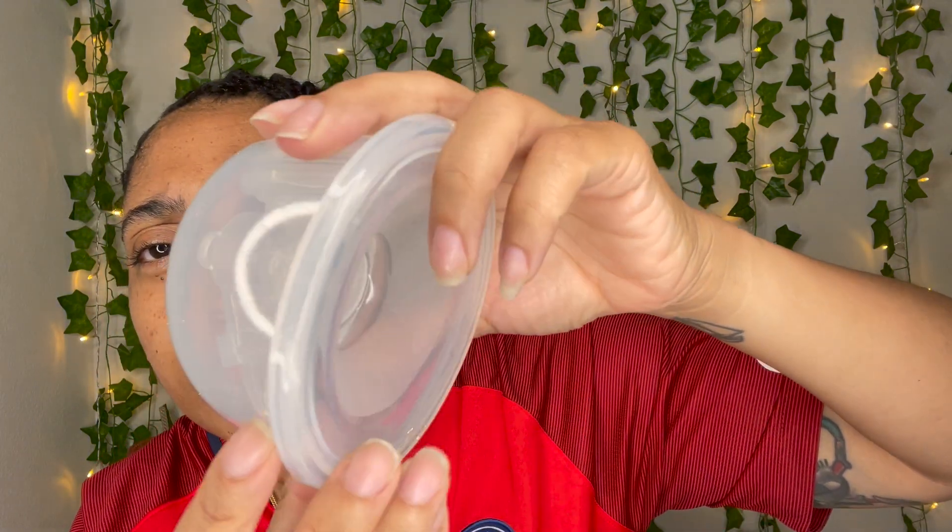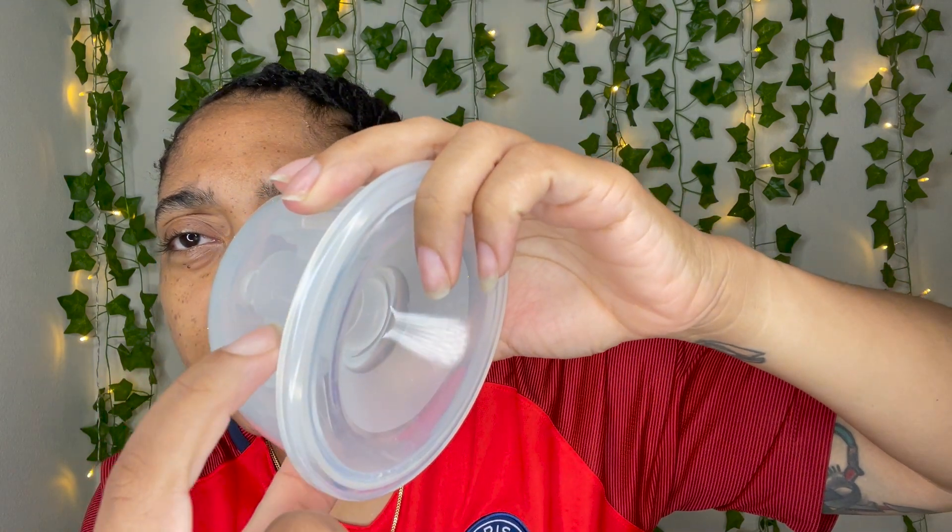I like this pump. It is a cheaper pump but has a little stronger suction — I prefer the stronger suction and it doesn't hurt my nipples. I get good milk production out of it. The battery lasts well, easy cleanup. One note: it says it's quiet, but it's noticeable — you couldn't be in an office space and use it because people would know. It is spill-proof while on, but once you take it off, be careful — use two fingers to remove the cup and sit it on its back.